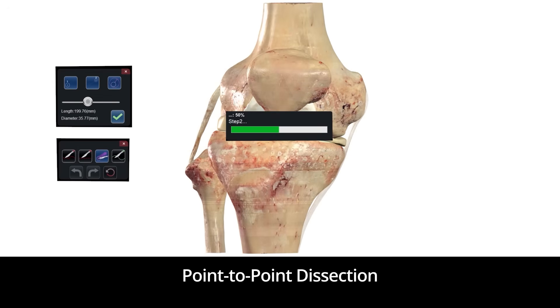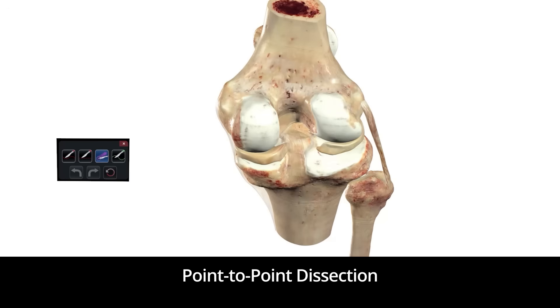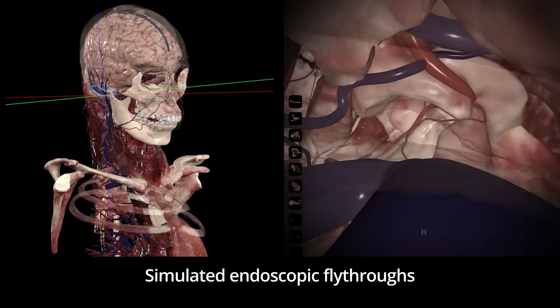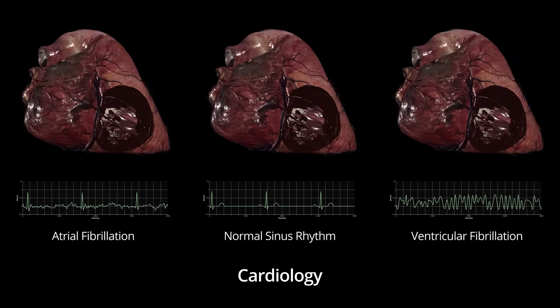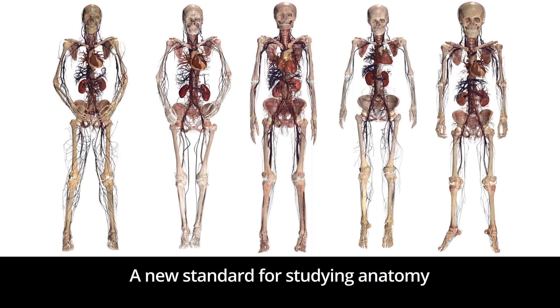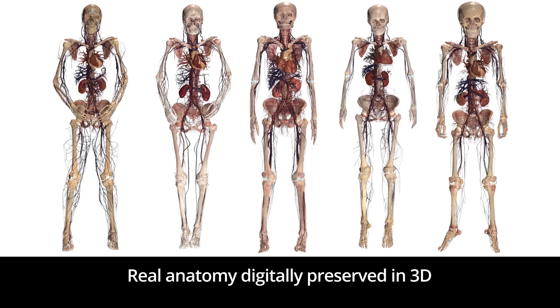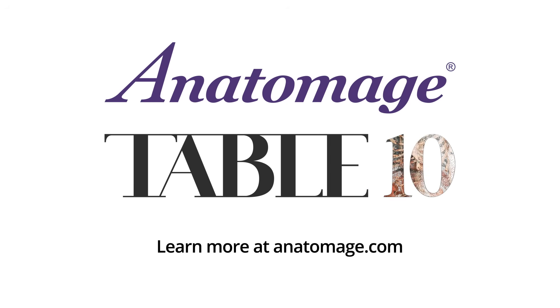Table 10 also elevates clinical training and care — from practicing customized surgical procedures and adapting to the unique anatomical variations of individual patients, to inspecting how the angle and rotation of an ultrasound probe may affect the field of view of internal anatomy, exploring the inside of a human body with simulated endoscopic fly-throughs, or investigating various heart rates and their corresponding ECG patterns so you can understand what they mean for your patients' cardiovascular well-being. Table 10 sets a new standard for studying anatomy and paves the way for an extensive scientific exploration into the human body that the world has never seen before. Join us on the journey today.